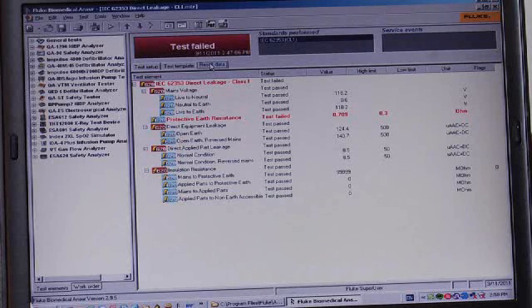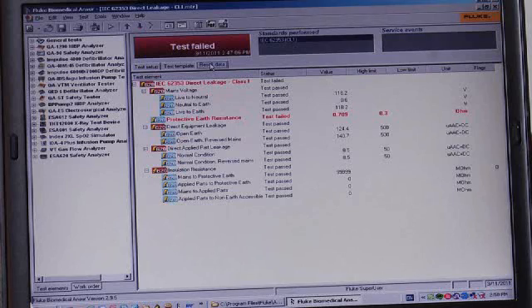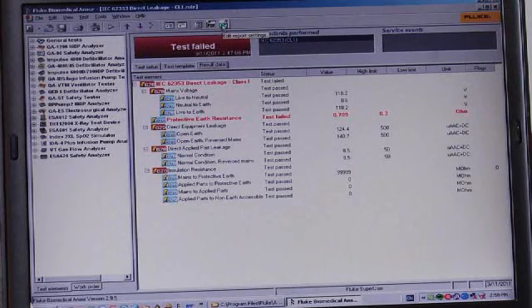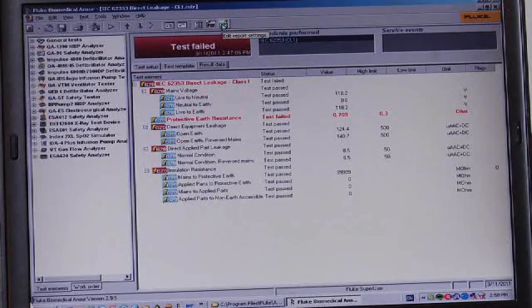To select the test report layout, we'll simply go up to the toolbar to our test report settings.